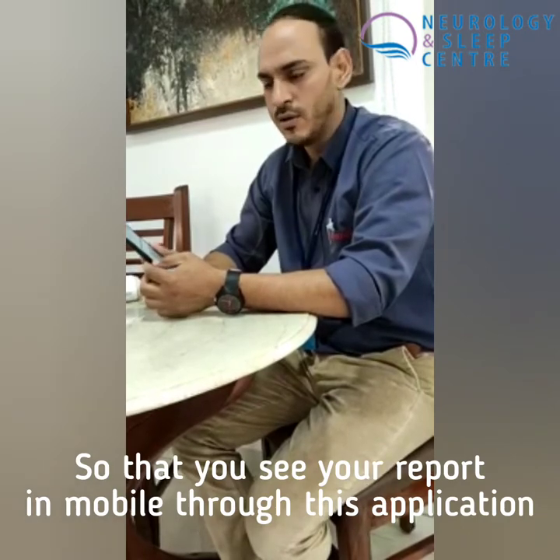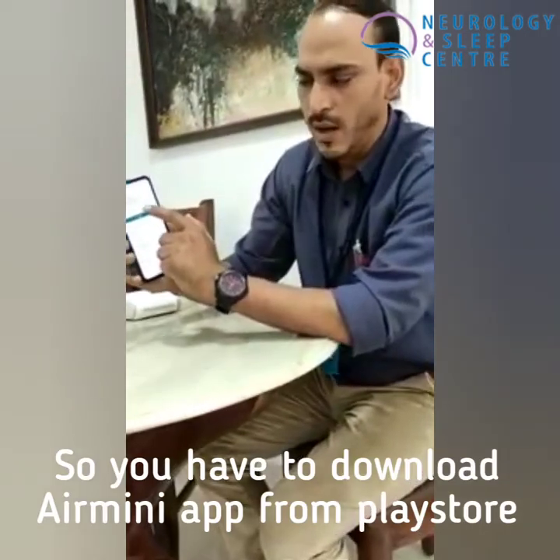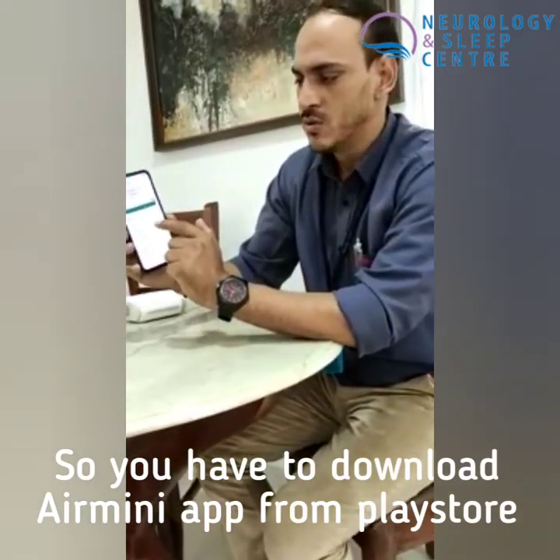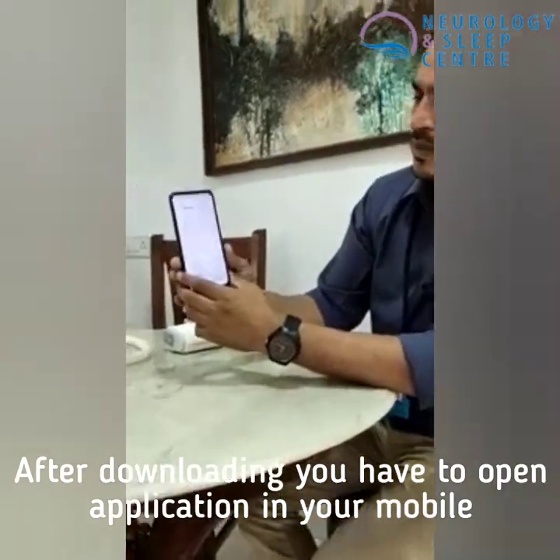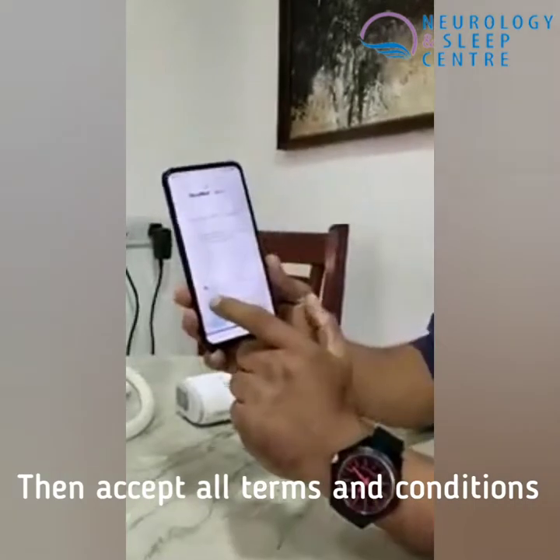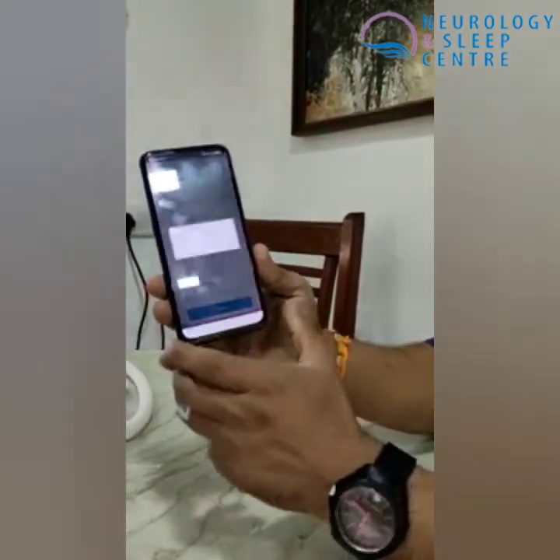So basically this is the mobile and I've just downloaded the AirMini app. I'm just going to open it. It is saying accept the terms and conditions — I've just accepted.